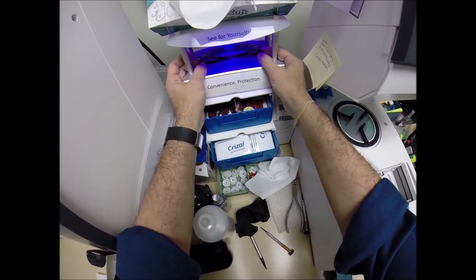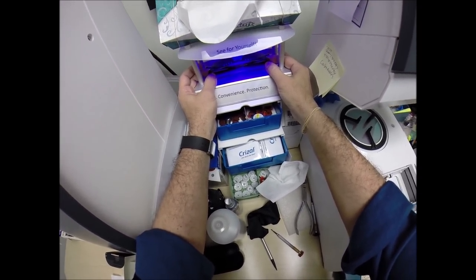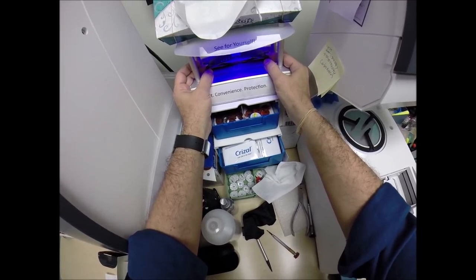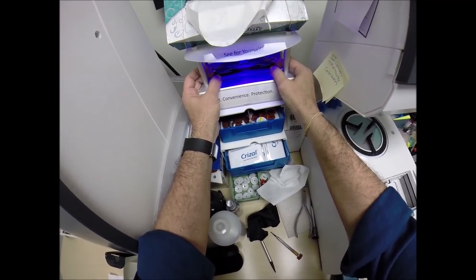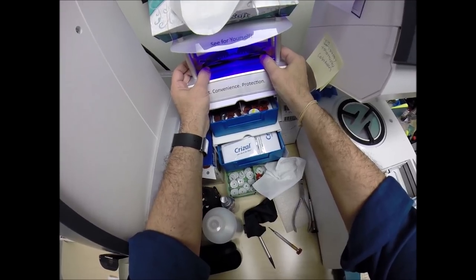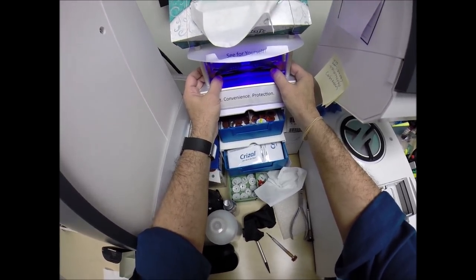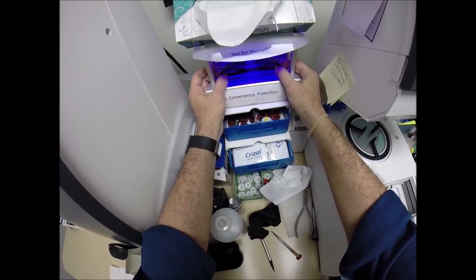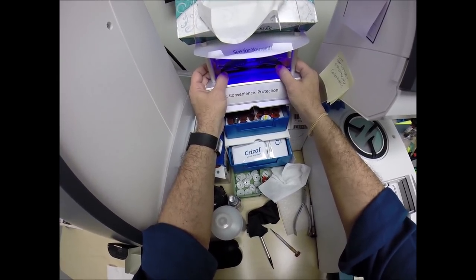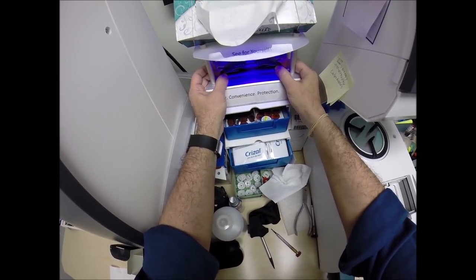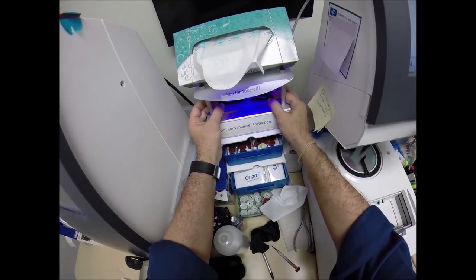Now Adam, pay attention now. This is important for everyone else watching too. All transition lenses will get dark on day one and continue to darken every day for the first couple weeks exposed to the sun. After that, they'll work for years at maximum performance. The only time that my lenses, the Transition Signature 7 lenses, won't work is if you're behind the windshield of a car. Your windshield absorbs all the sun's harmful ultraviolet rays that would cause your dashboard to crack from sitting in the sun all day.